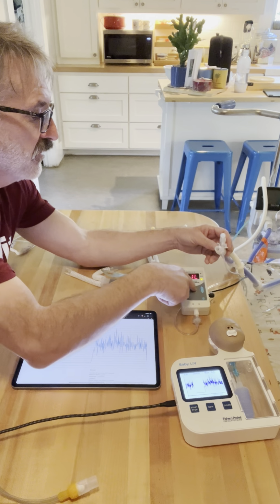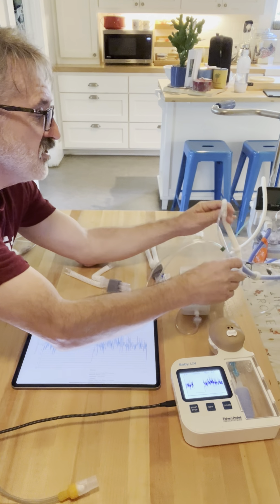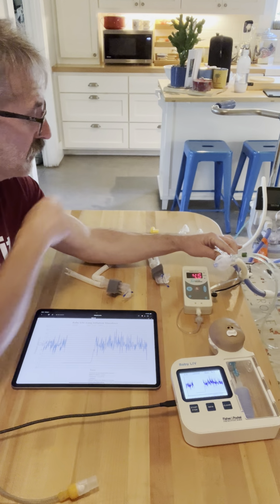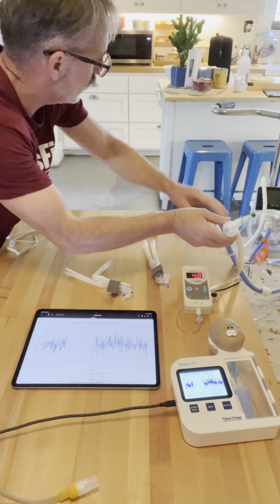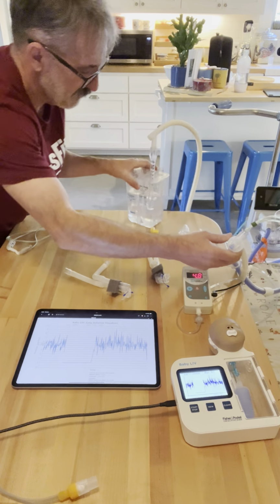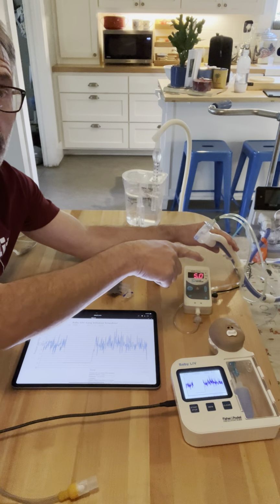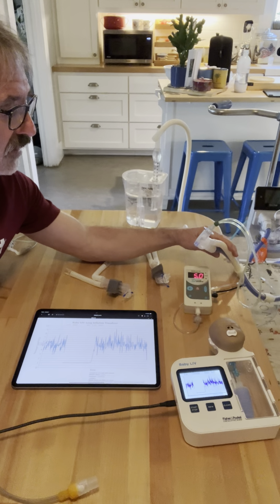Let's go ahead and silence my little manometer here. First things first, when I plug in my RAM, you'll notice that it's still bubbling on my bubbler over here. Let me bring that up so you guys can see this. Oh, there we go. So it's still bubbling. My manometer says 4.9, but it's not on a baby. Okay, so my manometer is no longer at play.